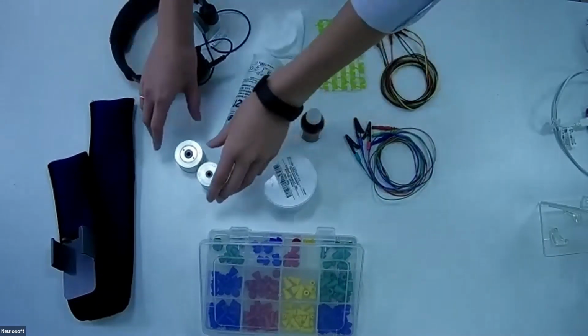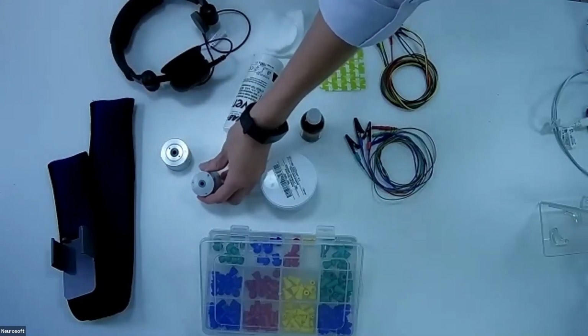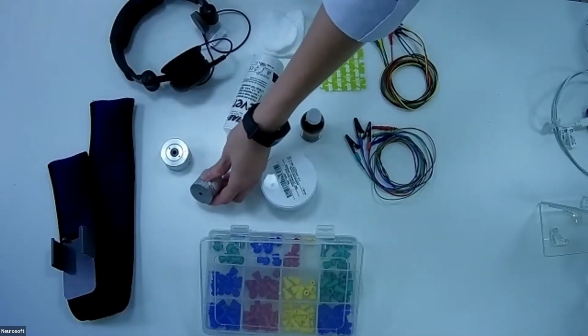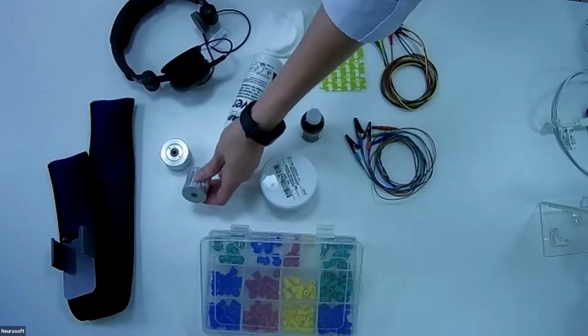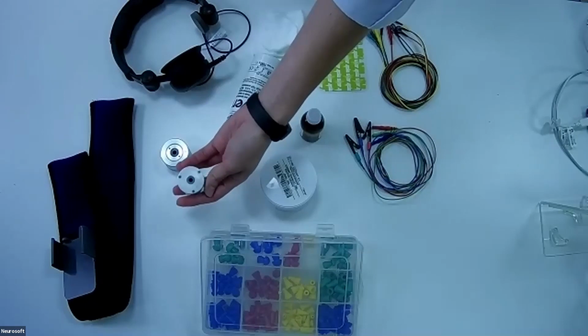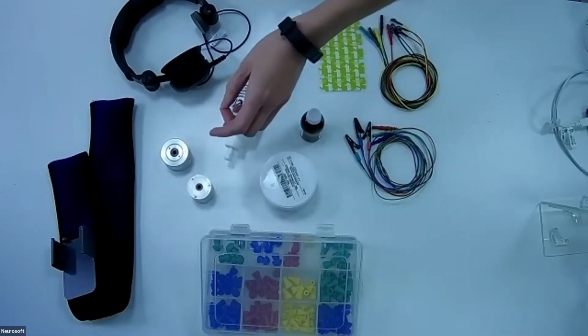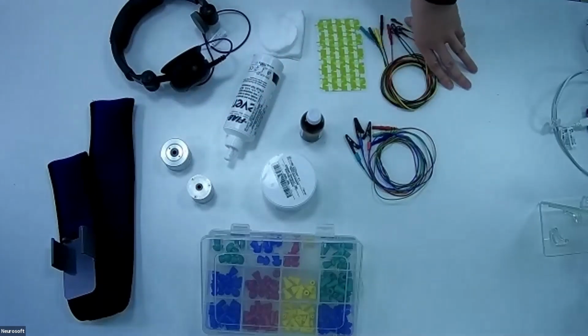We need to make a calibration process before we perform tympanometry. I will show you now with the help of such a test cavity alone, or the test cavity which is integrated in our holder to the AudioSmart device.